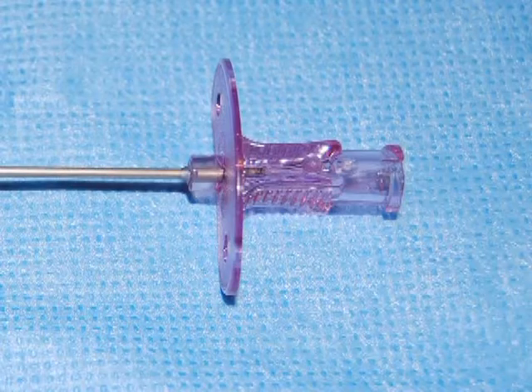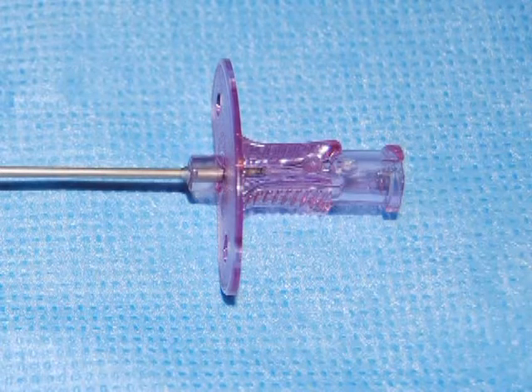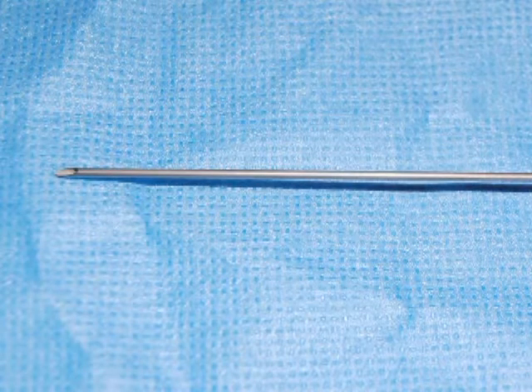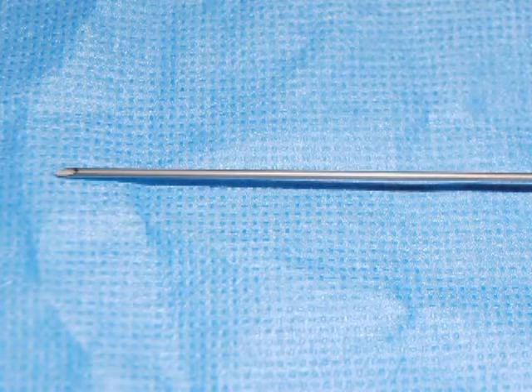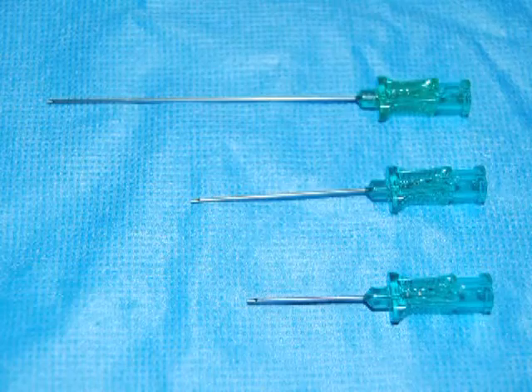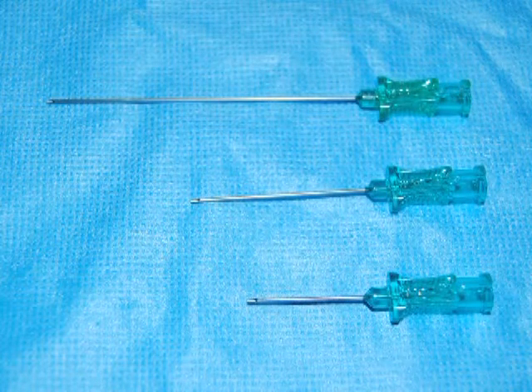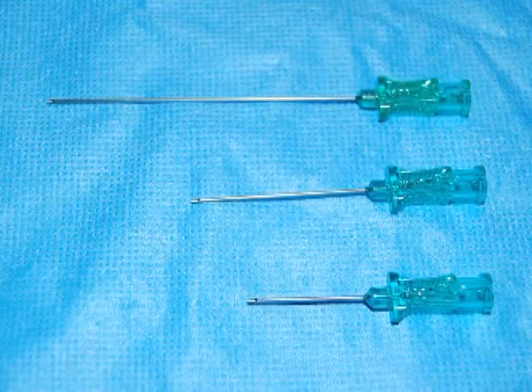There may be a protective shield or flange which makes handling the needle easier. The needles are about two and a half inches in length. For the micropuncture needles, these are generally 21 gauge needles. Some have a long segment; others are short segments.